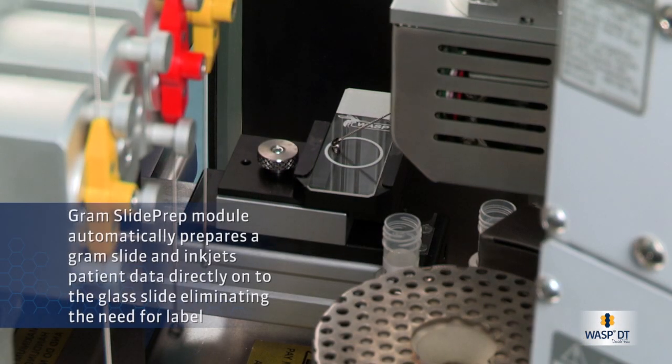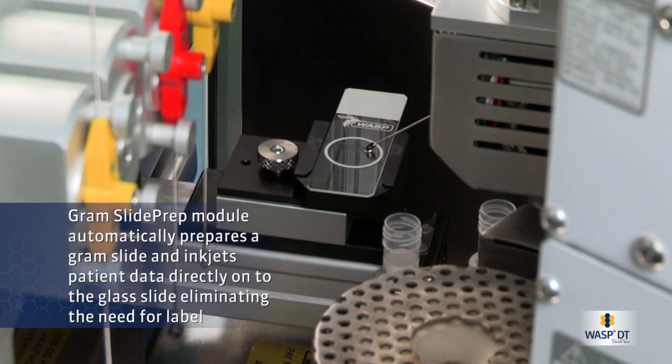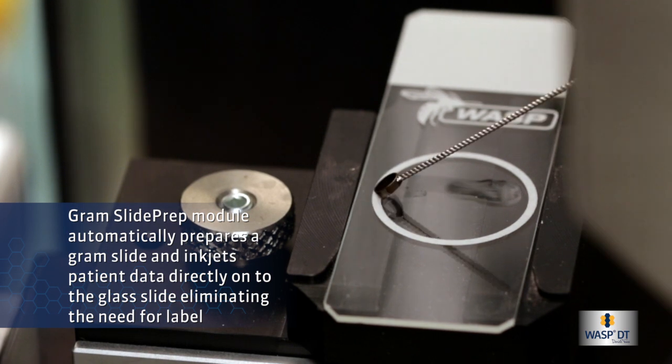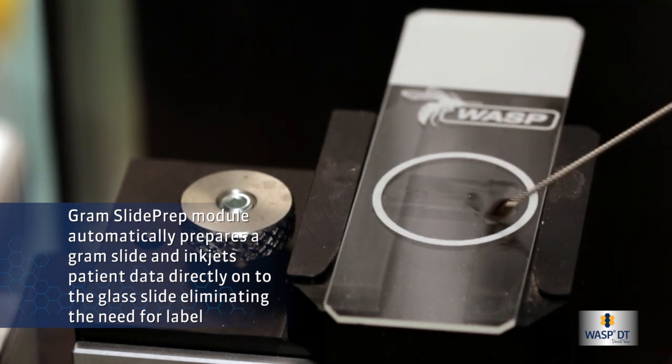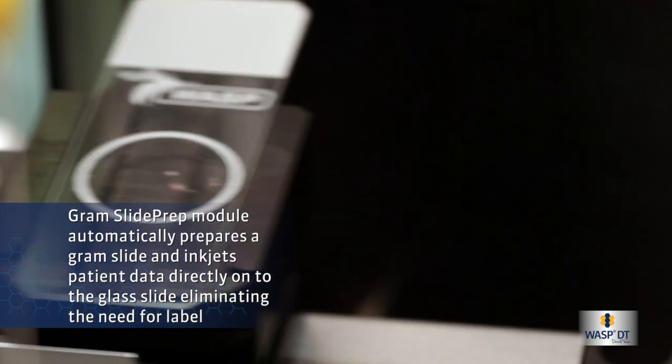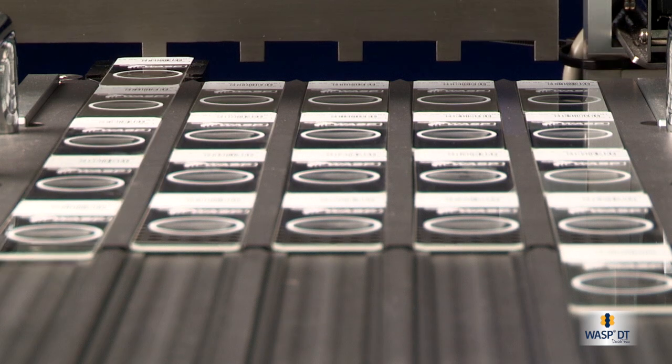The Gram slide prep module automatically prepares a Gram slide and inkjets patient data directly onto the glass slide, eliminating the need for a label.